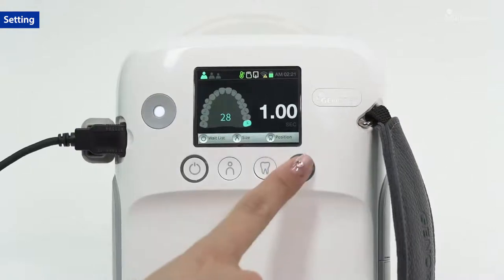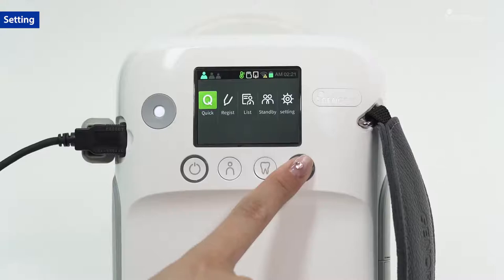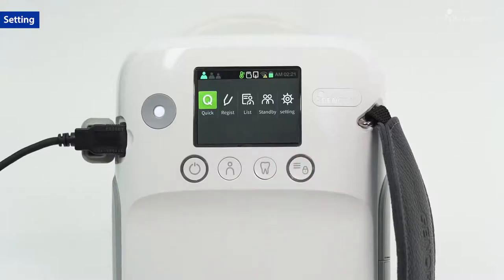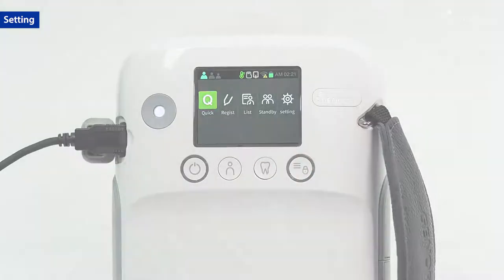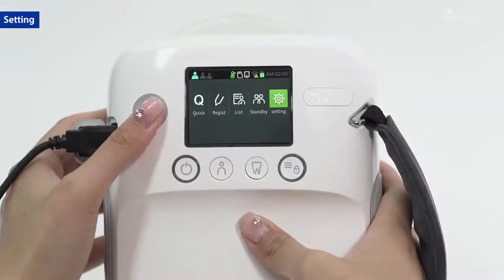Press the menu button. Manage the patient as shown, and set various options in the settings window.